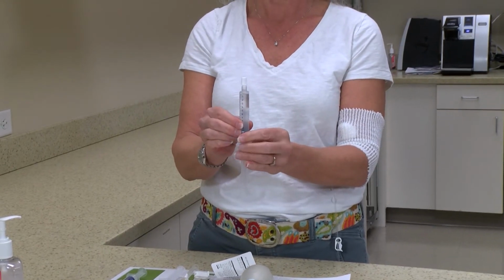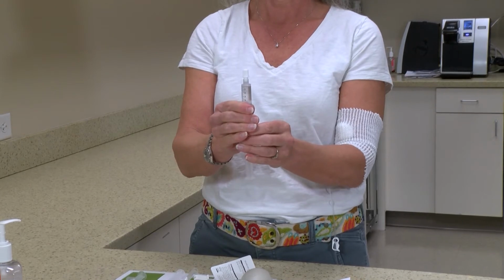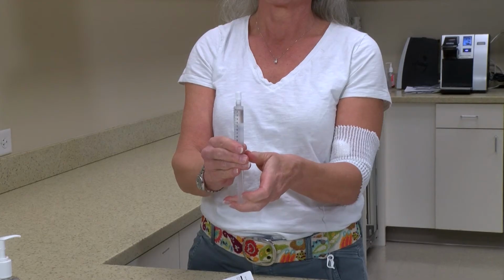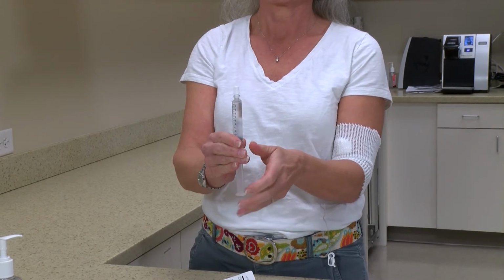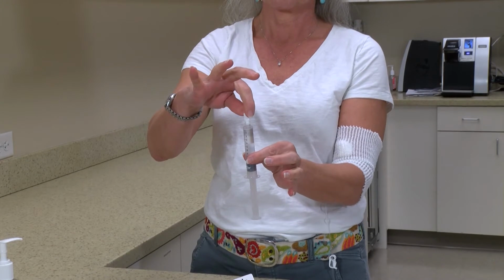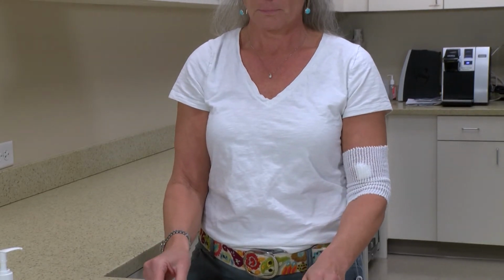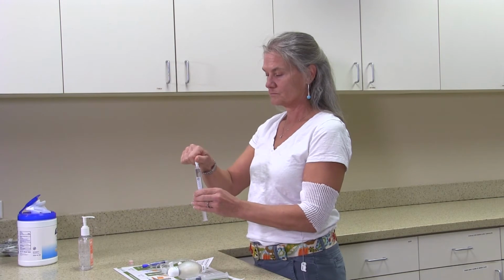Hold the syringe upright. Loosen the cap on the syringe without removing the cap, and gently pull back the plunger of the syringe to pull in a small amount of air, and then push the plunger until a little bit of solution comes out from the top of the syringe. Now you can retighten the cap. This removes any air that might be in the syringe. Tighten the cap, and then repeat this with all saline and heparin syringes.